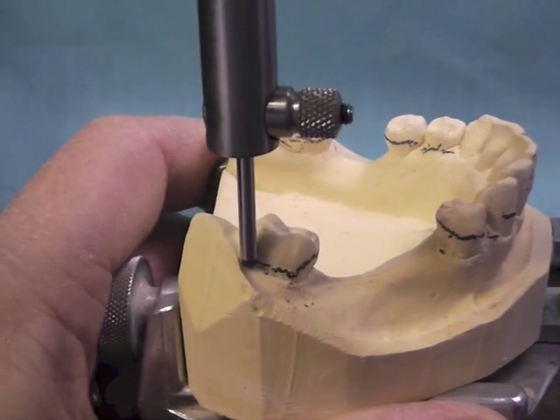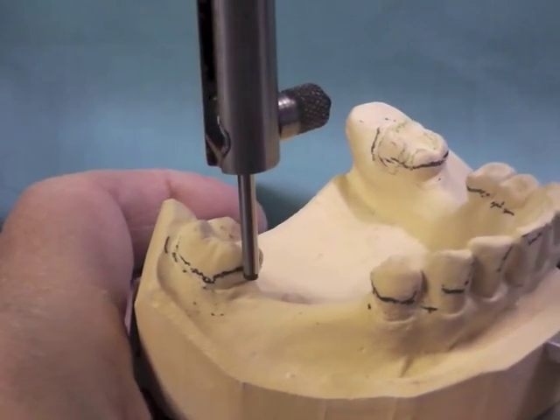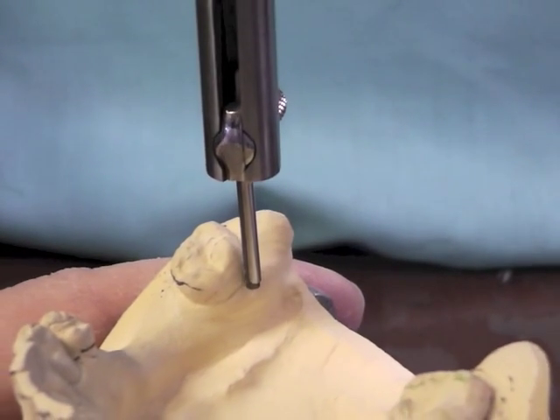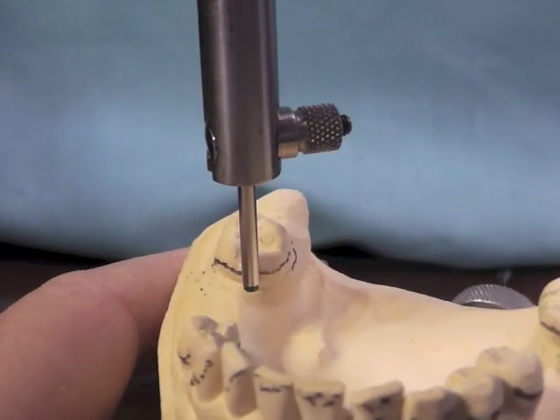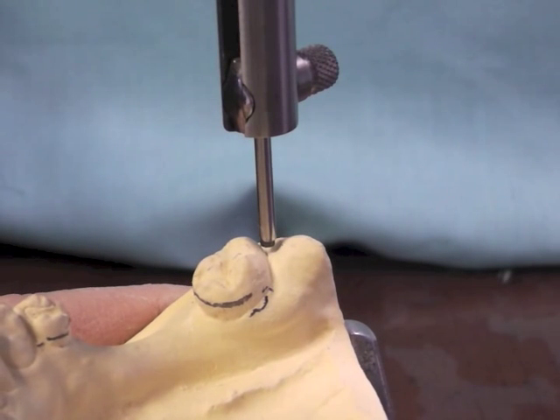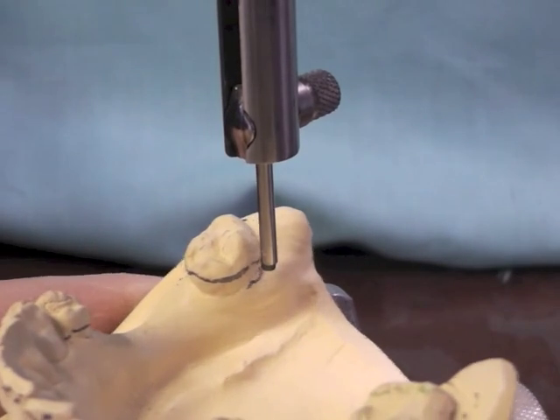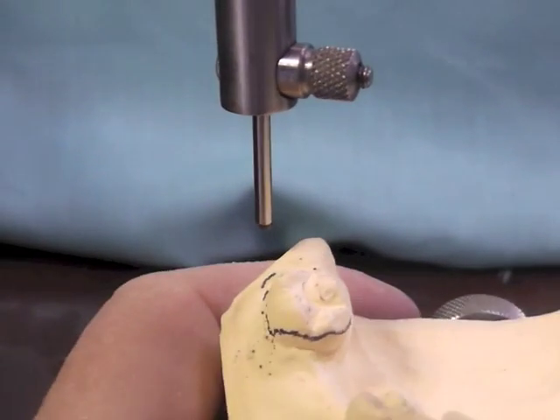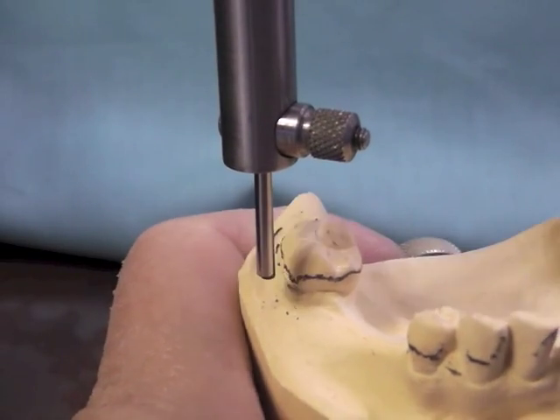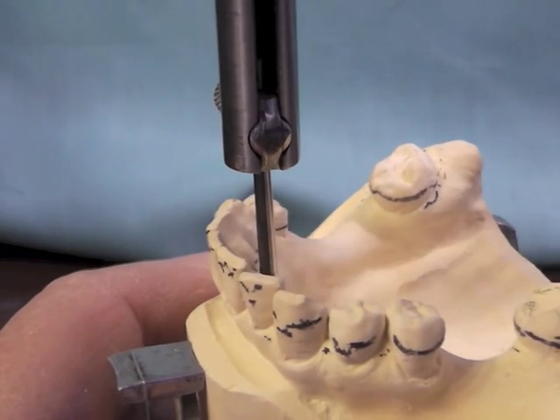As far as what I'm going to clasp, I'm going to be doing several different things on this cast, just so that you get an opportunity to see how different situations are handled. But the ideal situation would be a mesial rest on these two molars with distal lingual retention, or distal buccal retention would be the ideal — less metal on the tooth, and less difficulty in placing components of the clasp assembly.